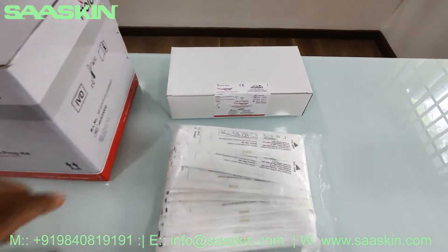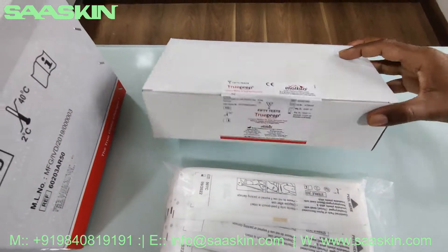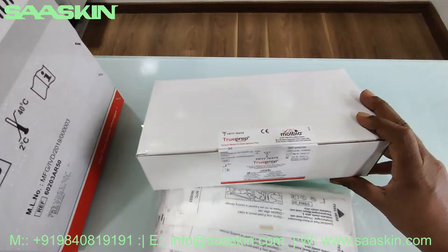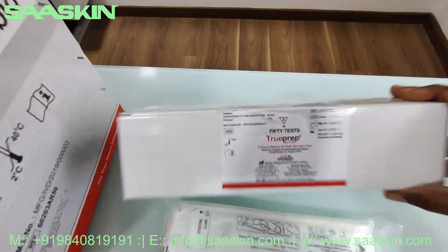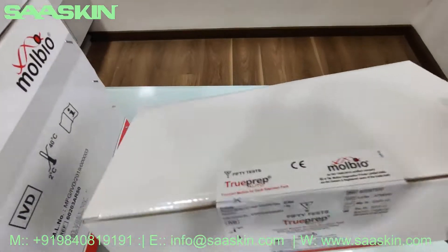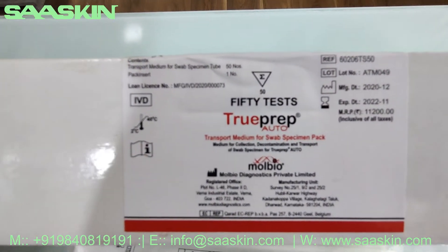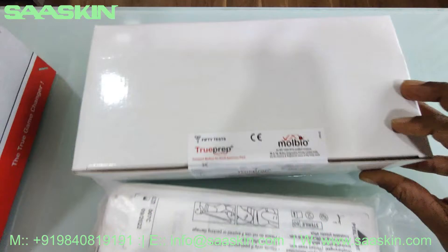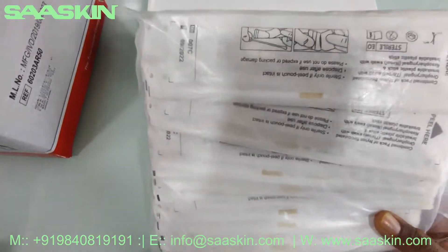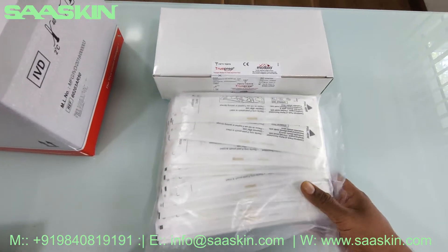First, if you see, there is a VTM kit — this is a 50-test pack VTM. This is how the VTM test box looks like. It is a transport medium and they separately give you the swab specimen stick, a sterile one, separately packed — 50-test pack.